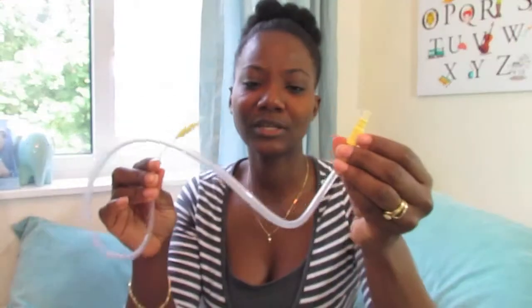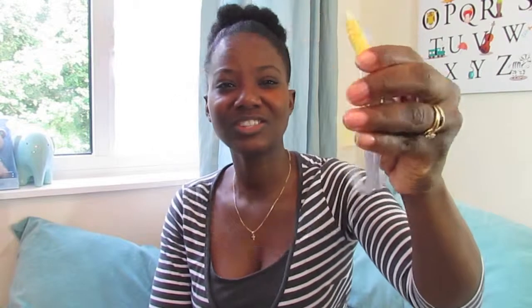The only thing I will add is it's hard to feel like you've cleaned this part, but it doesn't necessarily get dirty anyway. You do want to sterilize things after a time because milk can flow back into it depending on how you handle the pump. It's more difficult to clean but you can sterilize it easily. That's it on the pump, which I really like.